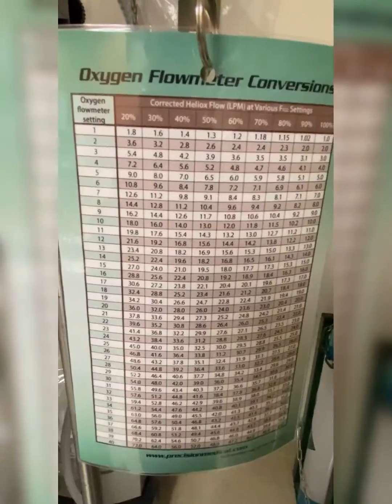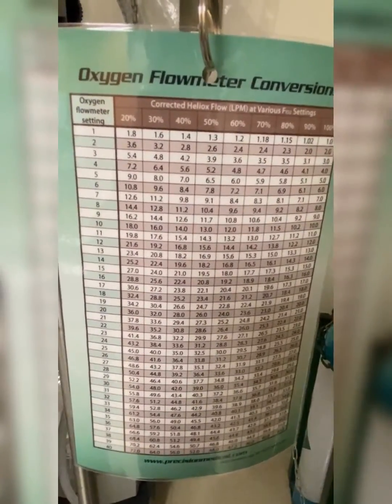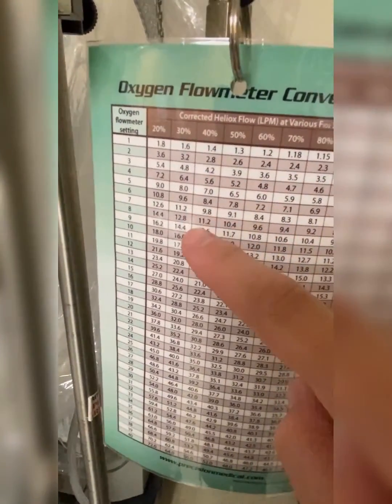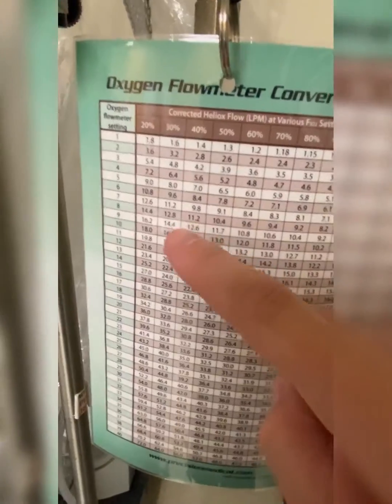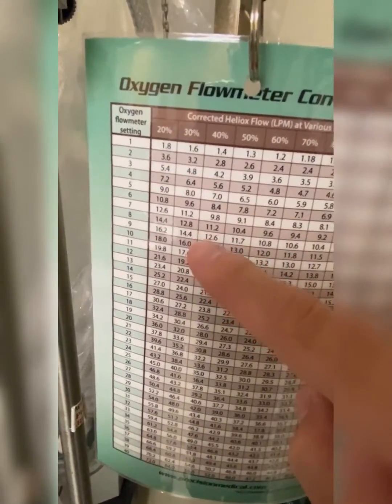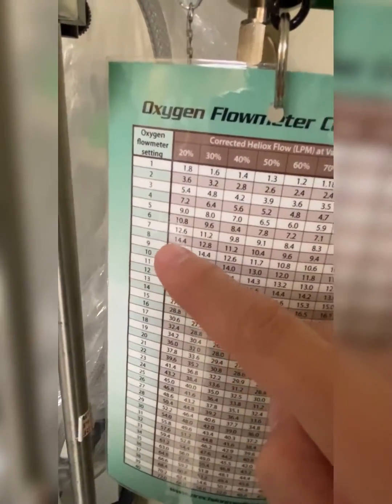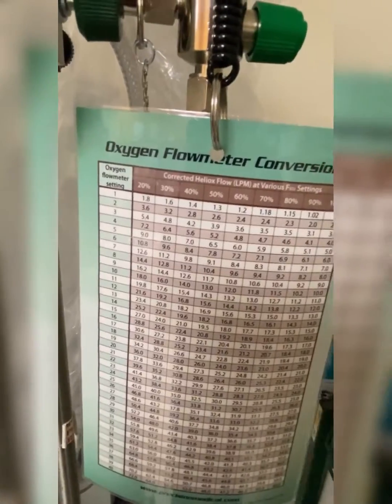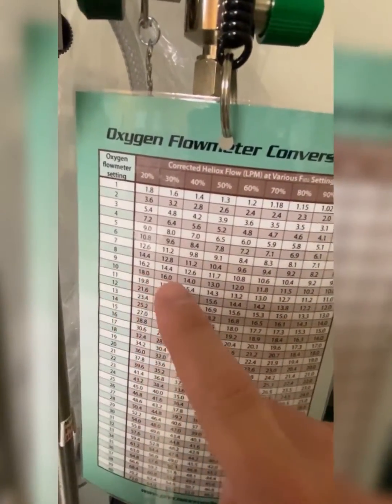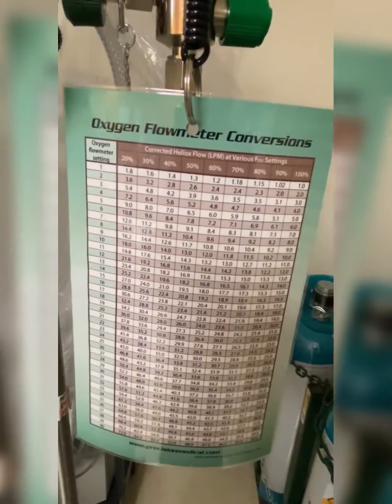That's too much — your tanks are going to run out very quickly. On a non-rebreather, you really only need about 15 liters a minute. What you can do is go under your 30% column and run your finger down until you get close to your goal flow, which is around 15. So I can either pick 14.4 or 16, and I know I only need my flow meter at about 9 or 10 to meet my total flow needs for the patient on a non-rebreather. A flow of 9 or 10 gets me right around that 15-16 area of flow, and that should be perfect for my patient.